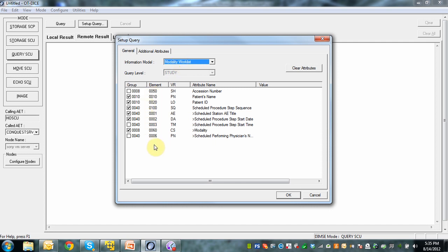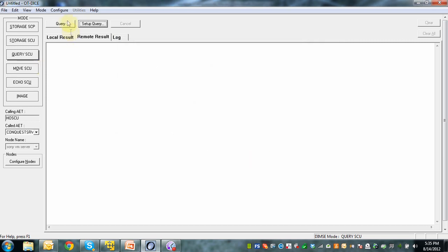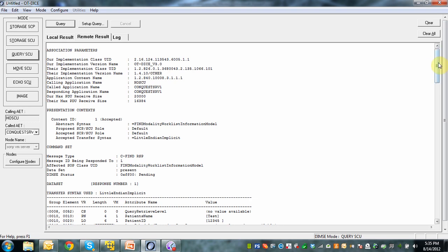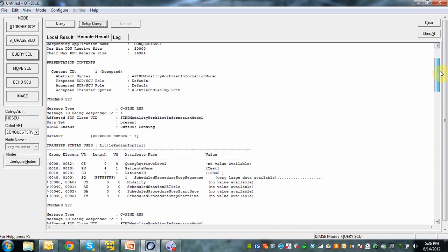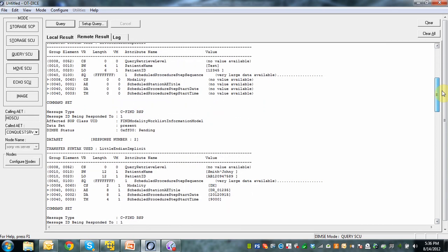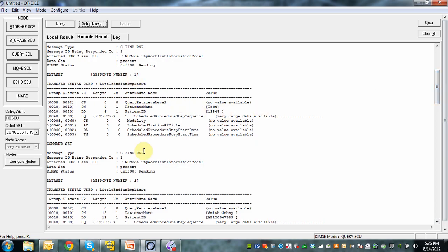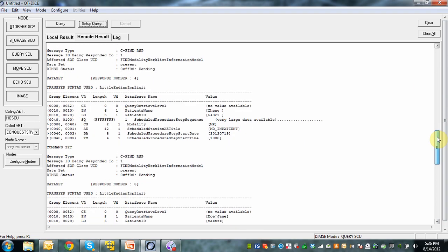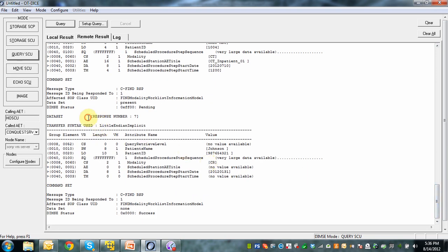Going back to OT-DICE, we perform the query. We do query, set up the query, and select the modality worklist information model. For the first query, I click on patient name, ID, scheduled procedure step sequence, AE title, date and time, and modality. I do my query and can see all my responses. I did an open query, so all entries should come back from the provider. I get seven responses back — the last response is number seven with a status of success.